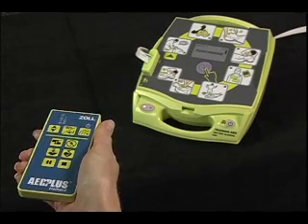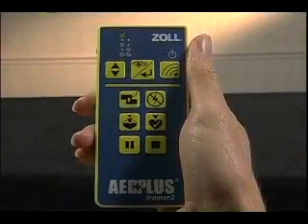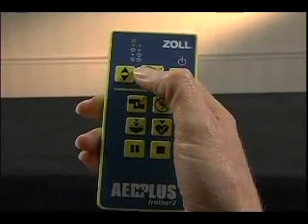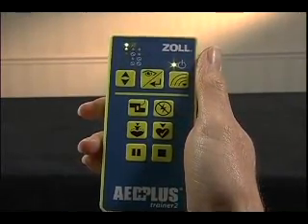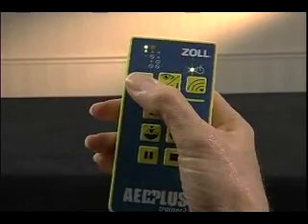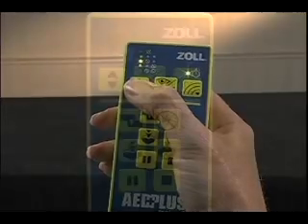You can be sure the scenario has been transmitted to the Trainer 2 if it responds by flashing the red indicator light once. When you turn the remote controller on, the green lights will show you the current scenario setting for 8 seconds. While these lights are on, you can change scenario settings at the remote controller prior to transmission.